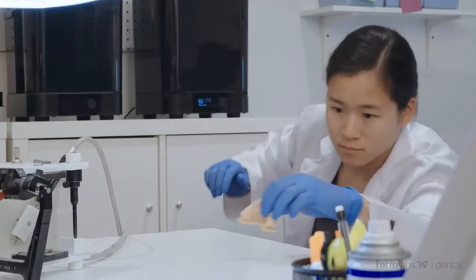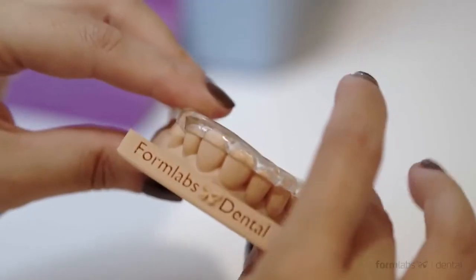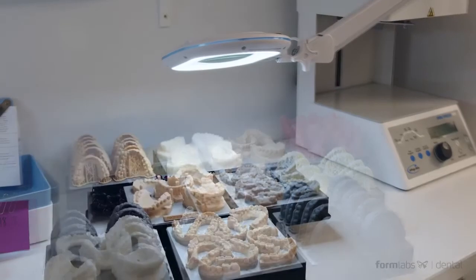Models and appliances printed on the Form 3B have unmatched surface quality and clarity due to the reduction of forces during the print process.